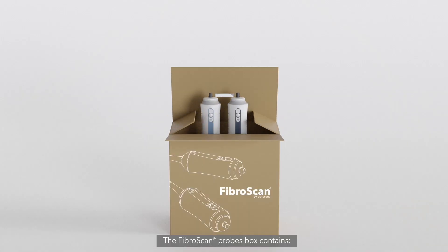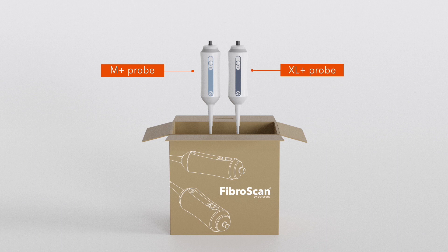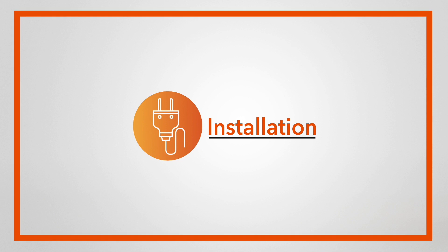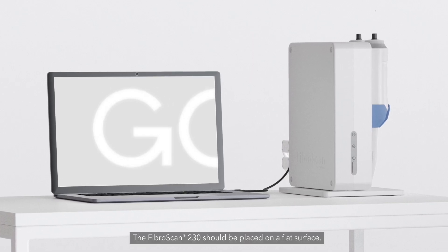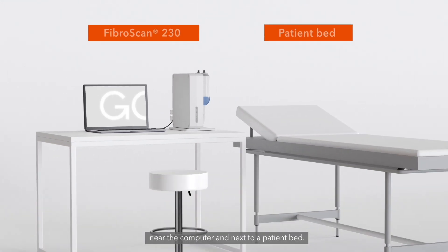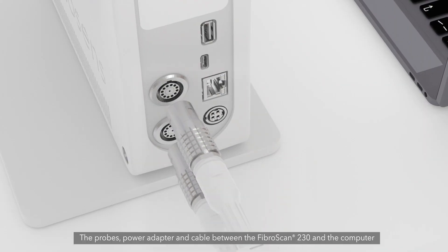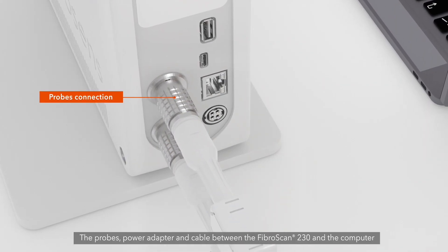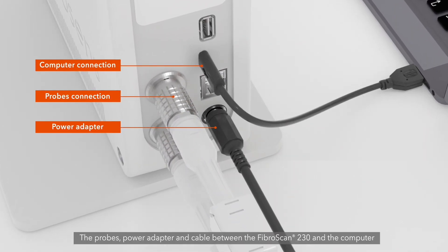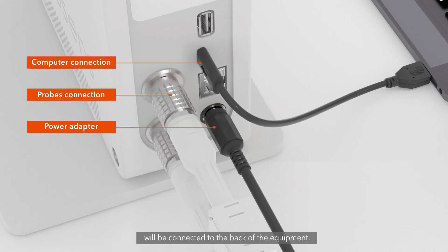The FibroScan probes box contains the M-Plus and XL-Plus probes. The FibroScan 230 should be placed on a flat surface near the computer and next to a patient bed. The probes, power adapter, and cable between the FibroScan 230 and the computer will be connected to the back of the equipment.